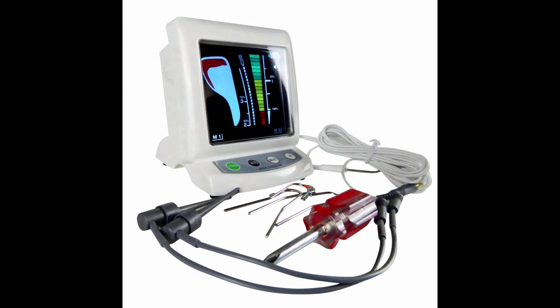Display: reflex colored LCD display with buzzer. Weight approximately 370 grams. Powered by 5 AA batteries — batteries are not supplied.